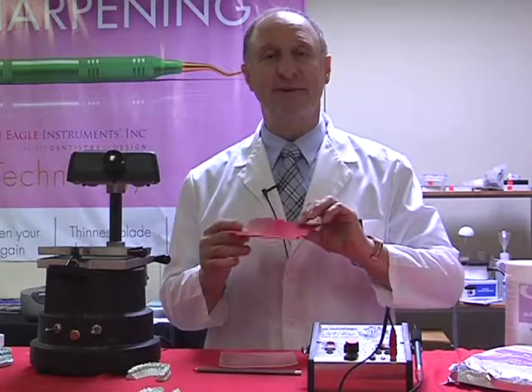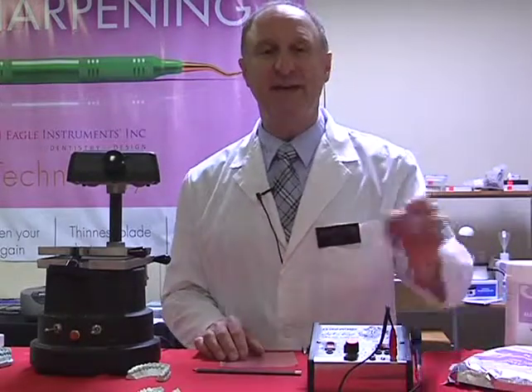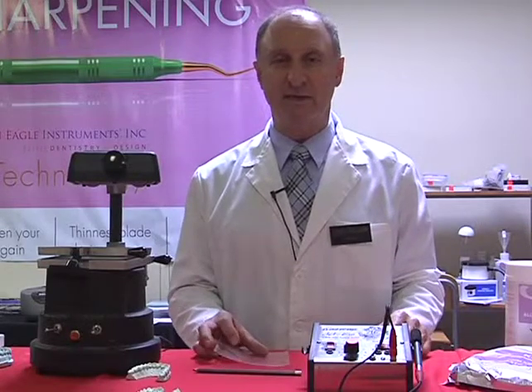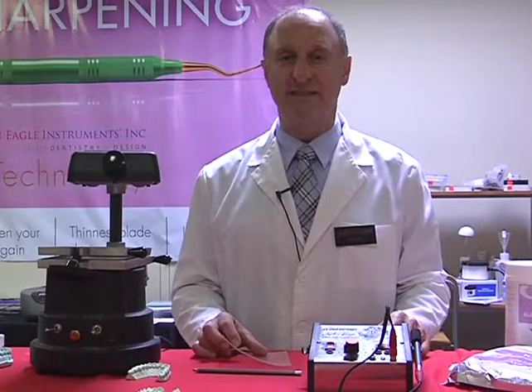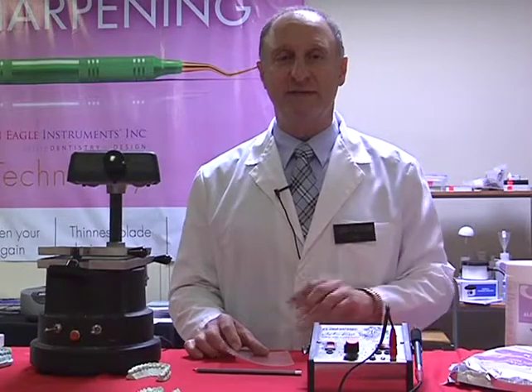And these again come in varying thicknesses. They run in materials which are normally EVA, ethylene vinyl acetate, as well as PVA as well, polyvinyl acetate. Most of the materials nowadays are obviously safe and easy to use.